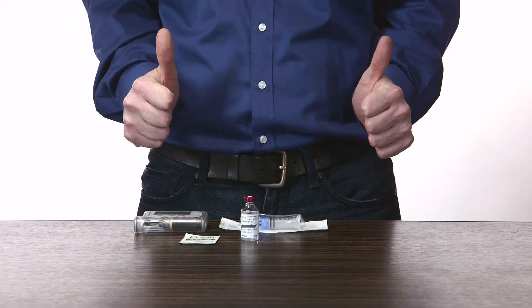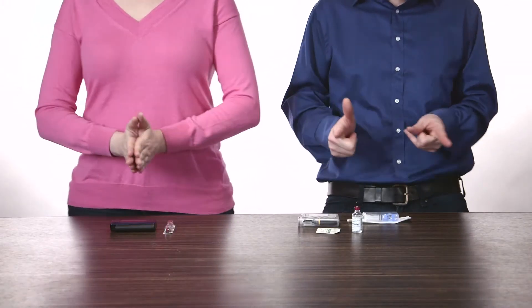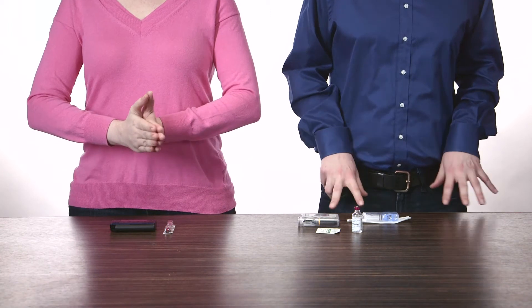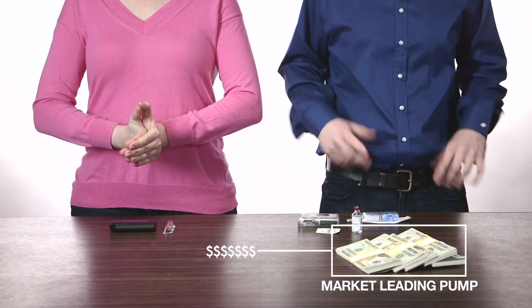And on the other side, we have the current market leader. And just to make it interesting, we're adding some cash to be won — the bucks needed to start using the market leader, and to that purse, we'll add the bucks needed to start using Snap.